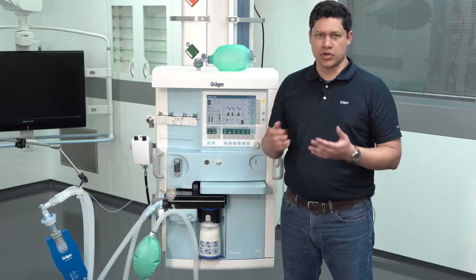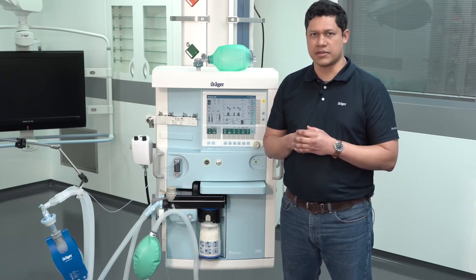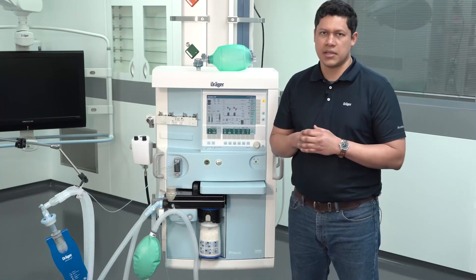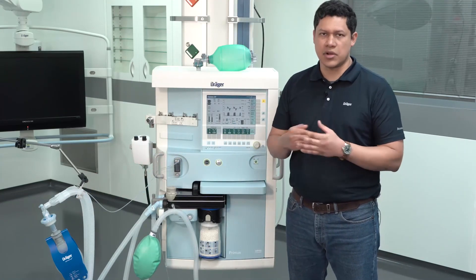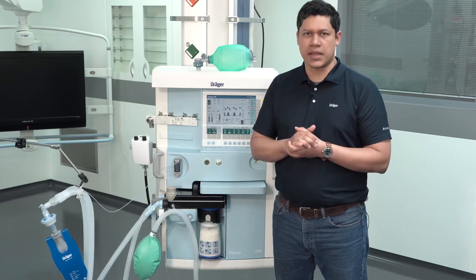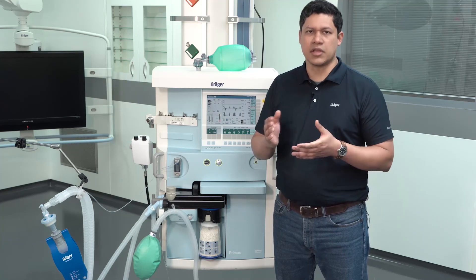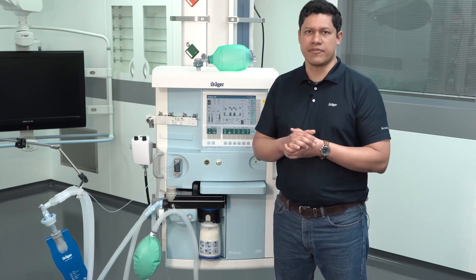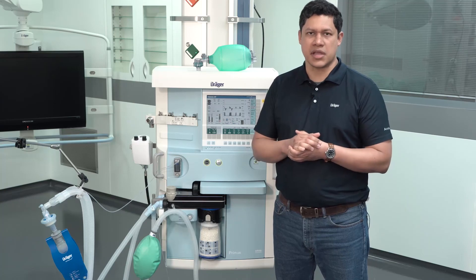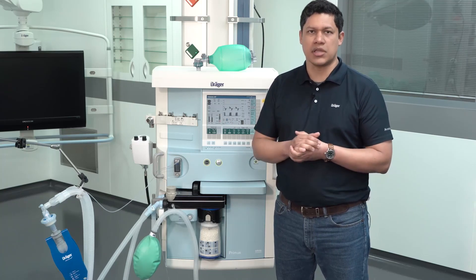Keep in mind that you also have to regularly verify the patient filter. Look for humidity or a clogged filter; in that case, you have to exchange it. Please remember, only mechanical filters should be used, if possible in combination with passive humidification by using a filter with HME, placed as close as possible to the patient in the system.